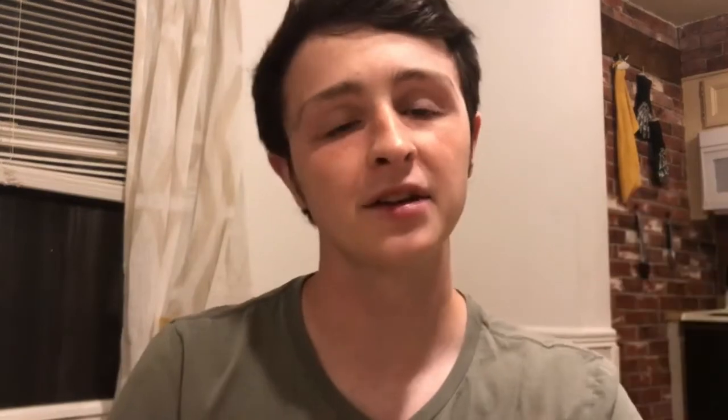And that's how you do it — that is how you fill a syringe with insulin. I'll do another video about actually using a syringe, as I like keeping my videos short and it's a separate topic worth discussing in more detail. One technique at a time. I hope you learn how to tame your Type 1 diabetes the right way — how to use old-school methods such as syringes, which I honestly think are better for managing diabetes than the pens and even the pumps. You can get yourself a bunch of syringes at Walmart or another store near you; most places you don't need a prescription. It's really good for getting precise doses — let's say you're doing a half unit or even a quarter unit. You can't get that with pens, but you can get it with a syringe.